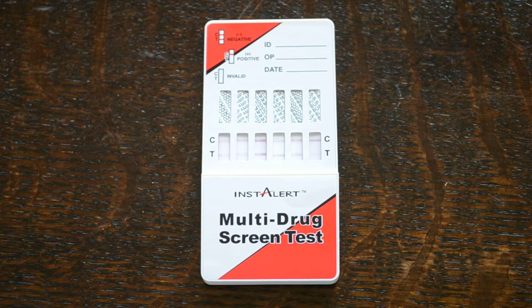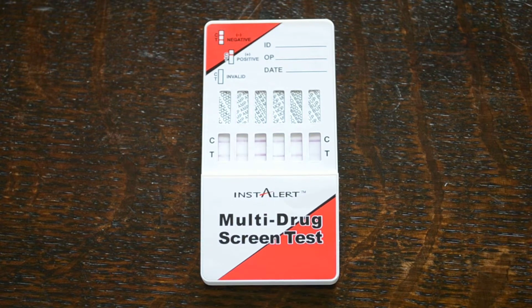But with all of these tests, as soon as you've got negative, clearly visible control and test lines showing, you can interpret the results as negative, and that may be as little as you've seen occurring here, 90 seconds, 2 minutes. What will occur if you just leave this now for the full 8 minutes is that the background will clear completely, leaving you with some really nice, clearly discernible lines, which are really nice and easy to interpret.